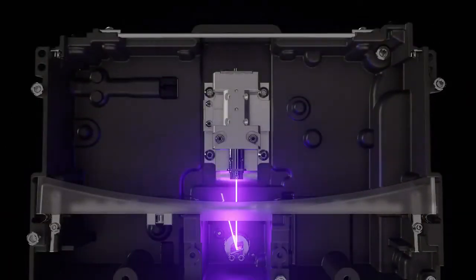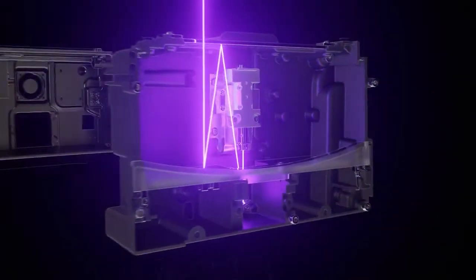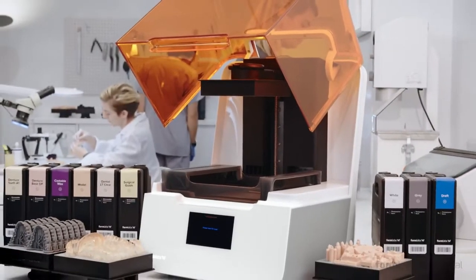Featuring our groundbreaking new low-force stereolithography technology, the Form 3B is the most accurate Formlabs printer yet.